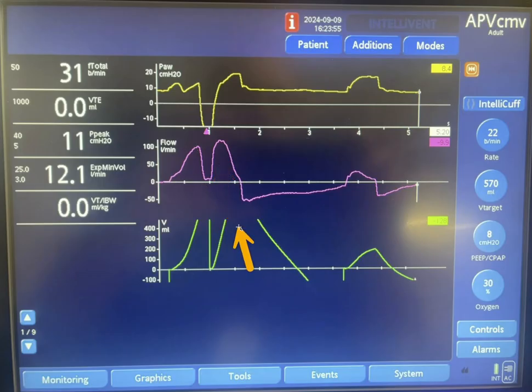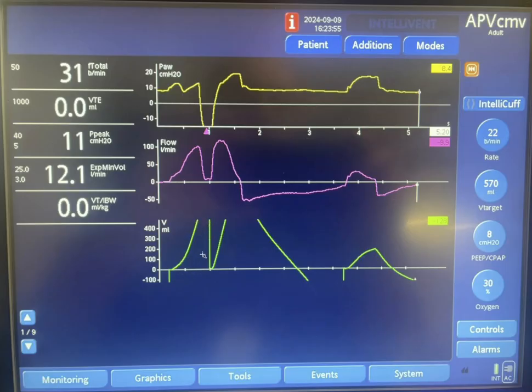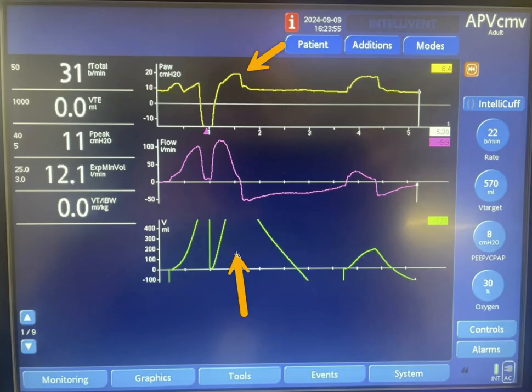The larger flow resulted in a larger tidal volume. You can see the tidal volume went up before it starts to go down with exhalation. The initial breath delivered about 500 mL into the lungs, and the second breath delivered around 700 mL — for a total of approximately 1200 mL. Exhalation starts here.